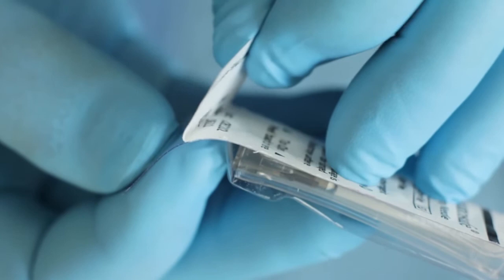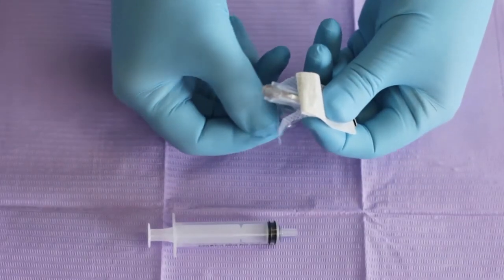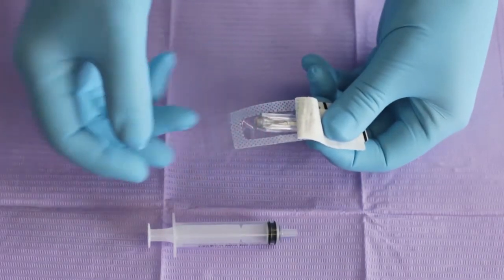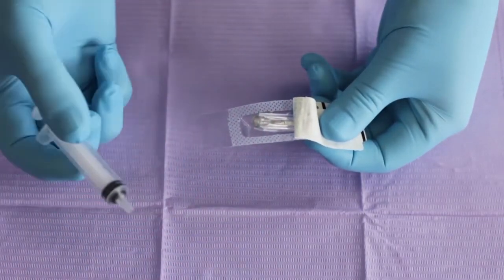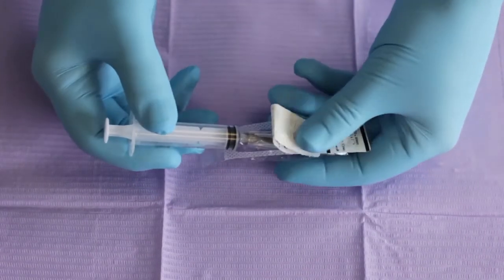Lift the edge of the paper cover and peel it backwards. Pinch base of the package at the fold and fold it downward. Fit the needle to the syringe and withdraw the safety needle from the package while maintaining the needle's orientation.